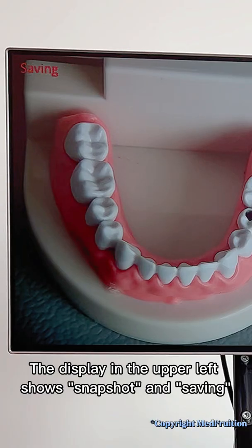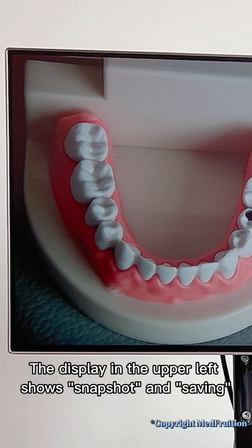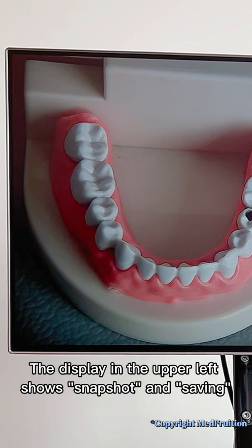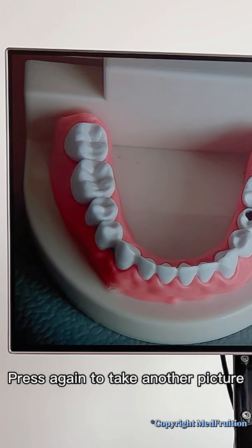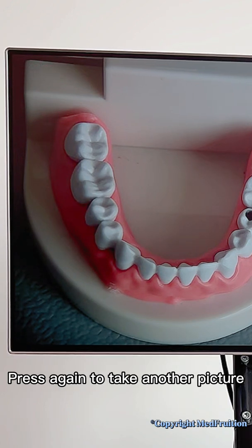The display in the upper left shows snapshot and saving. Press again to take another picture.